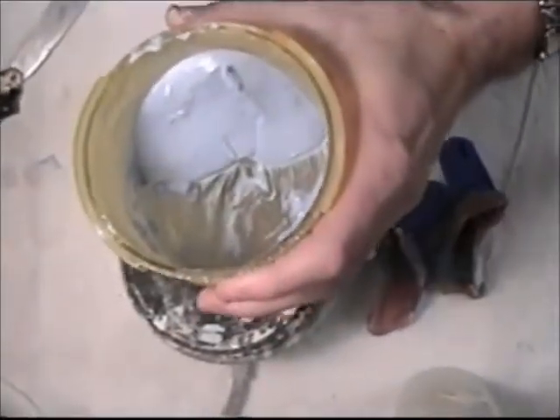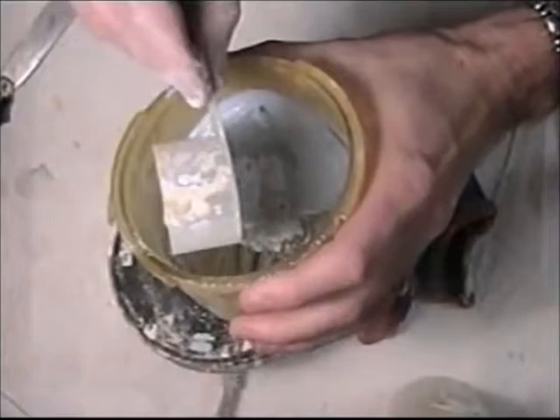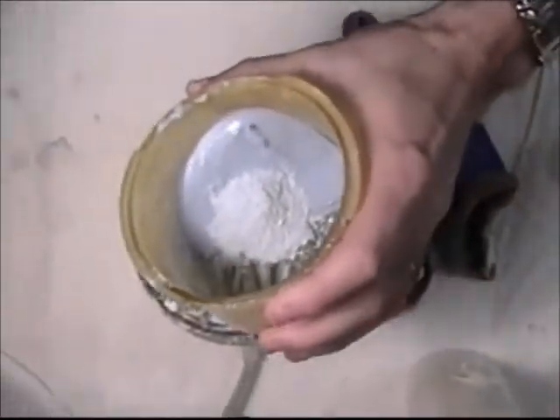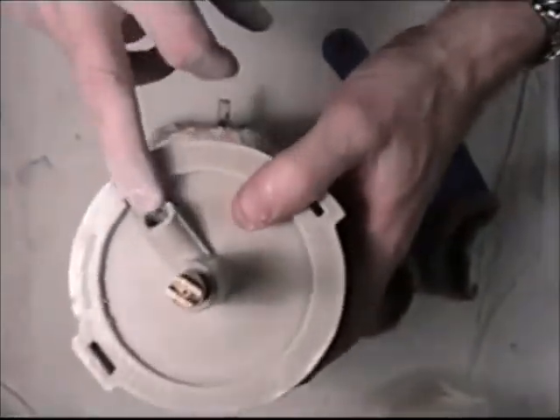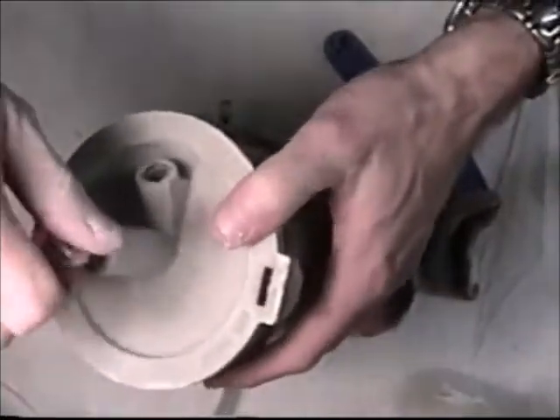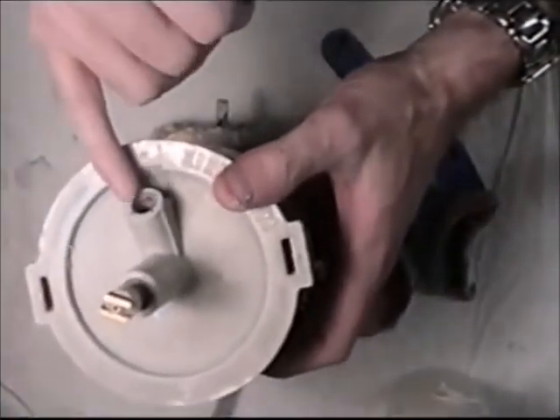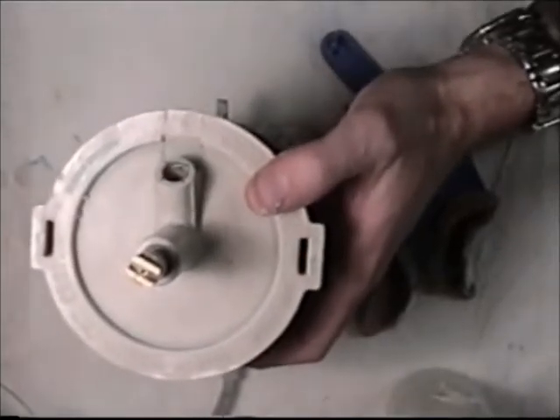I'll add a little more stone. Now I'm going to use a mixing machine with a suction that will hook a suction hose here, and I will run this under a mixing machine at slow speed that will mix the stone even more and suck out any bubbles. This will help me to eliminate any bubbles that may be poured into the impression.